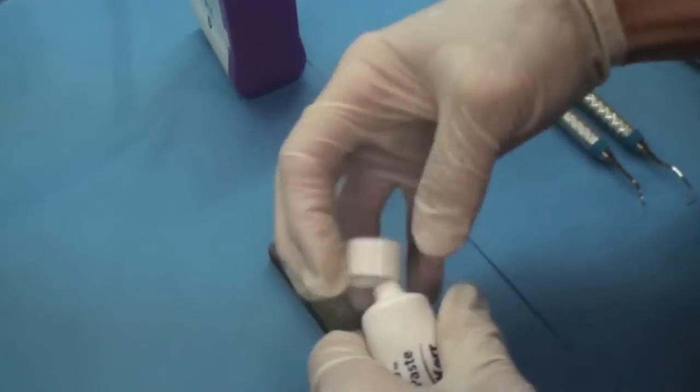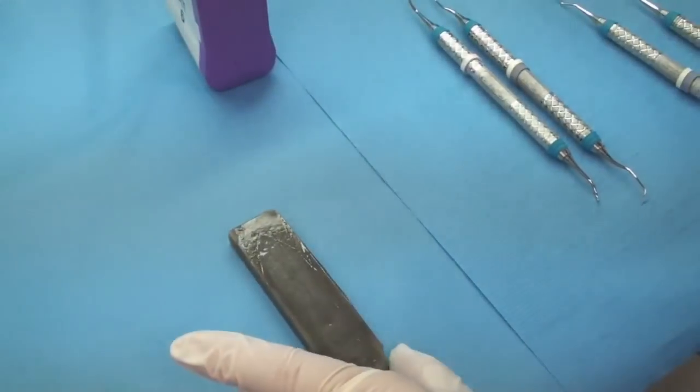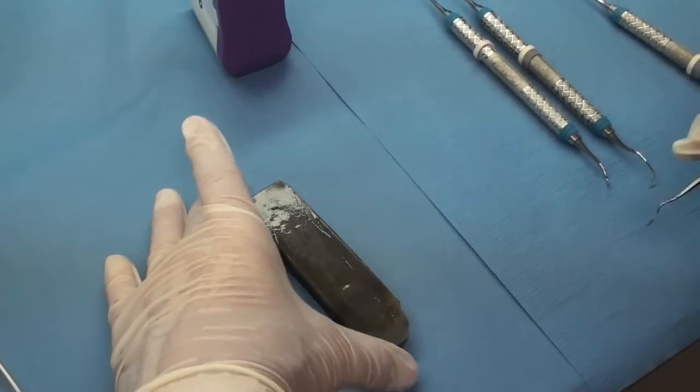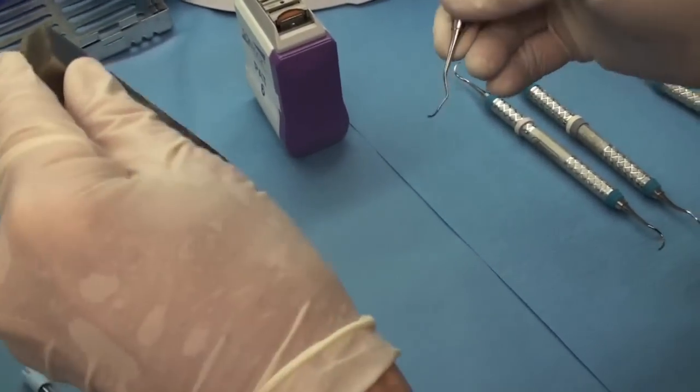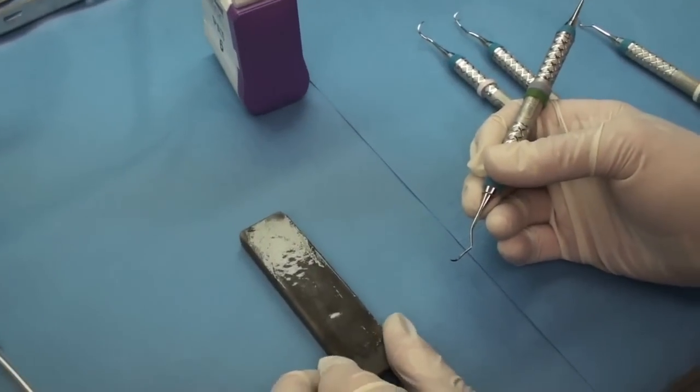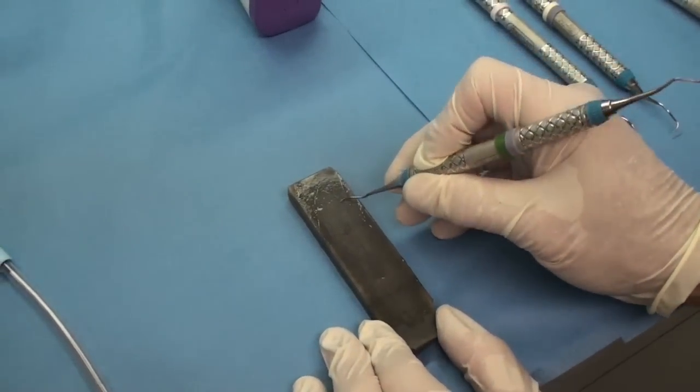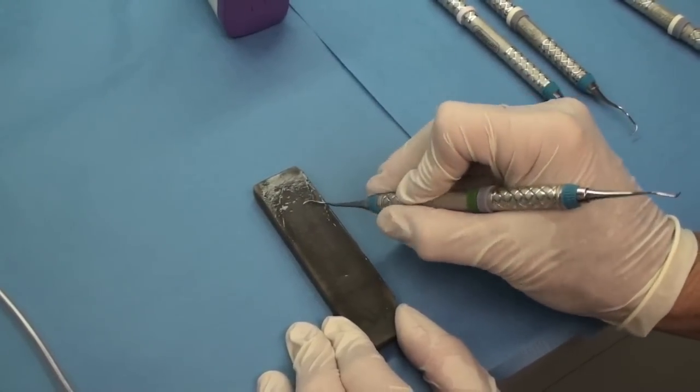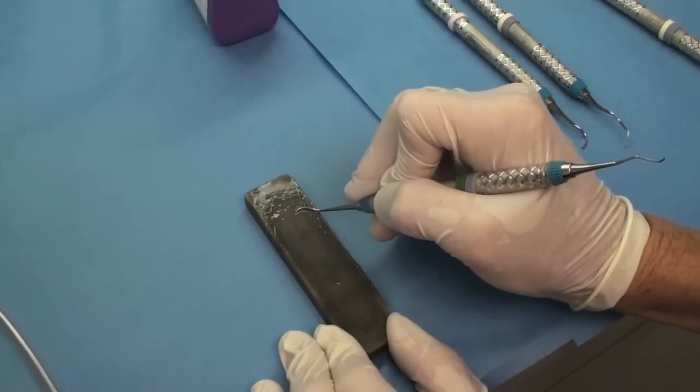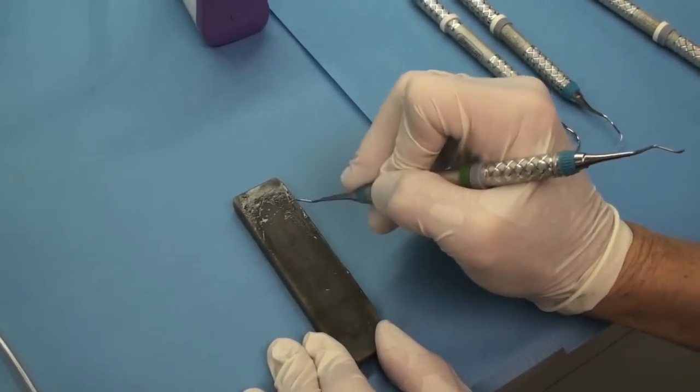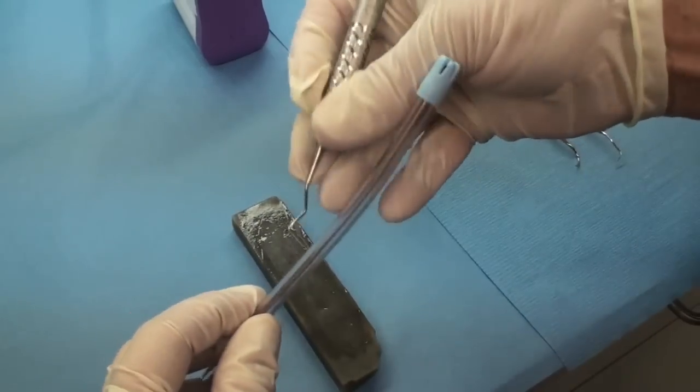Now when it comes to your hand stone, again, some of them need oil, some of them need water depending upon if you've got a ceramic stone or an Arkansas stone. So what you're going to do is you need to eliminate one of the hands on the clock. Remember they always told us 11 o'clock and one o'clock, but my 11 and my one could be different on a daily basis or between other hygienists. So if you at least have the stone on the counter, you're eliminating one part and you get a little bit more pressure. And the same thing, and I have to get down. Again, I have my loupes on and I'm holding this blade where I can see it's not up too high. It's not down too low. I can see the entire face and I know the blade is on that stone. All I do is pull and my wrist is also resting on the counter. So nothing is free floating. I'm in total control and I don't pull it very far and I only pull it in one direction.